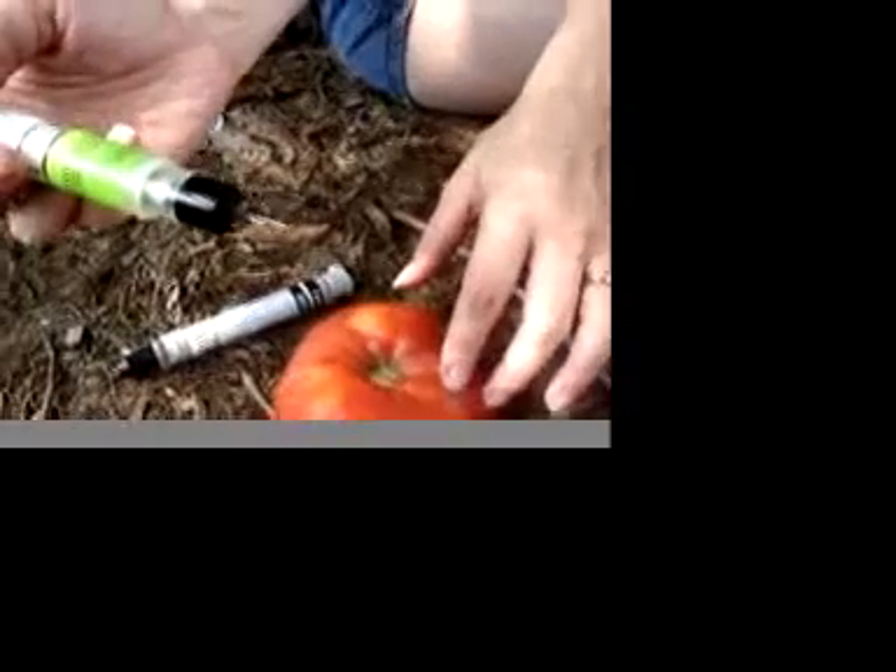It's not quite as big a needle as I thought it was. There it is — and you can see it's still got some juice in it.